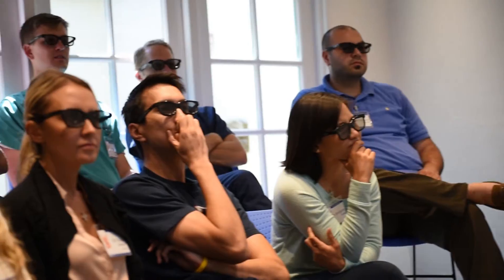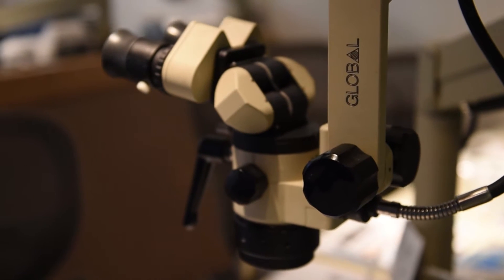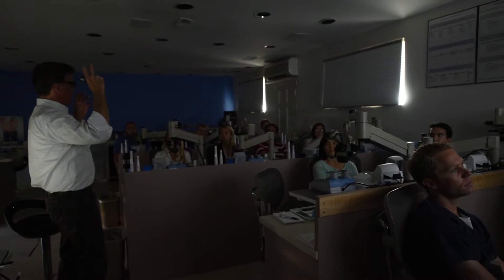The hardest part about teaching dentists to do root canal treatment has always been what's inside that extracted tooth — it's opaque, it's microscopic, it's really complicated. Now we own the anatomy, so everybody training in my lab is training in the exact same root structure. They have the same challenge, and I have chosen the root structure and canal anatomy to be perfectly applicable to the teaching objective I'm trying to share with them, and that makes it so much different.